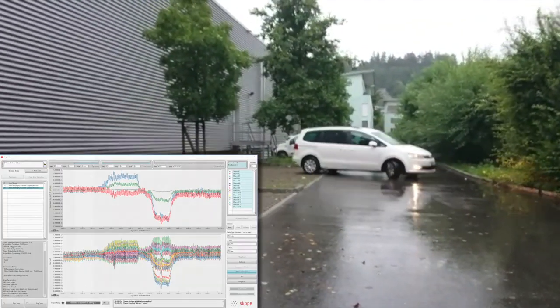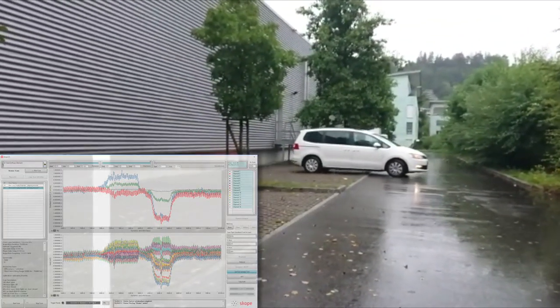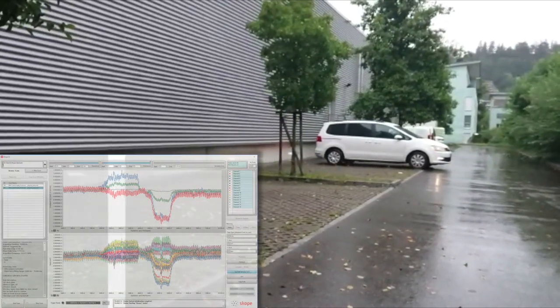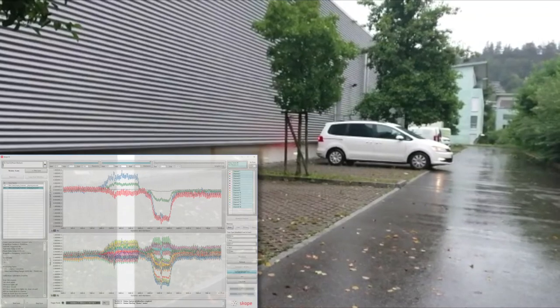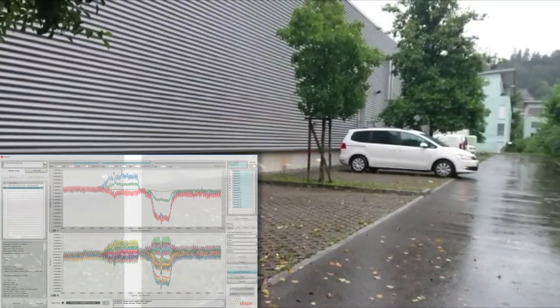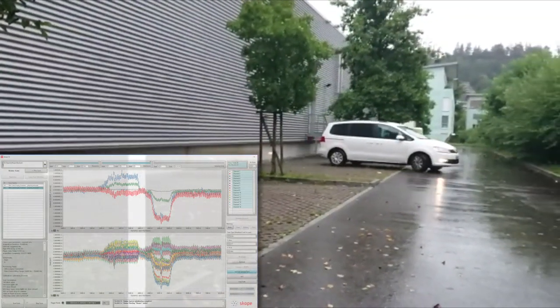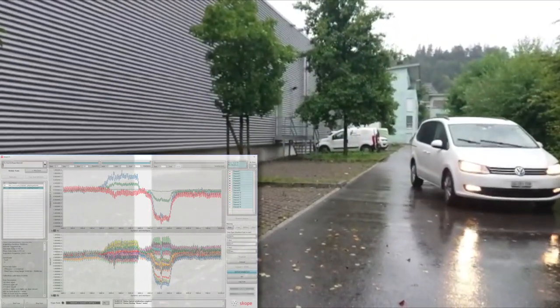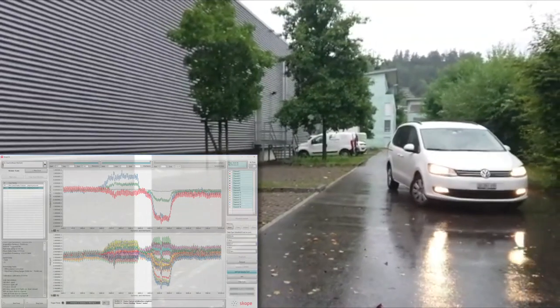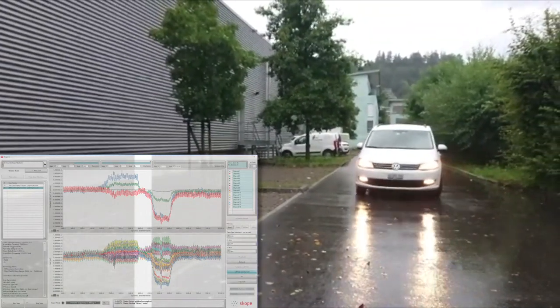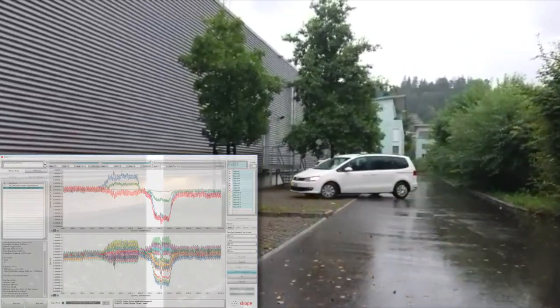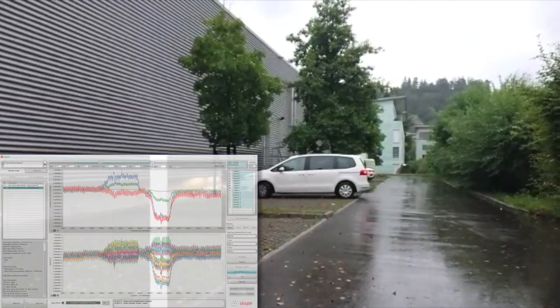There are many sites worldwide that are sited near to parking, roads or train tracks. Cars and trains can greatly distort the magnetic field, often at inopportune times. We demonstrate the effect of a car parking in this space directly outside the scan suite. First, we back the car up to the side of the scan suite, and sure enough, there is the first field response. The second field response lobe is from the car parking frontways into the spot.